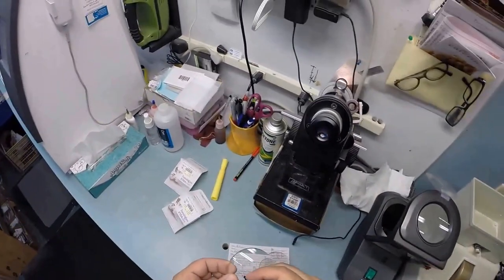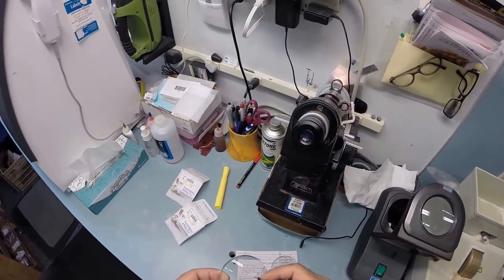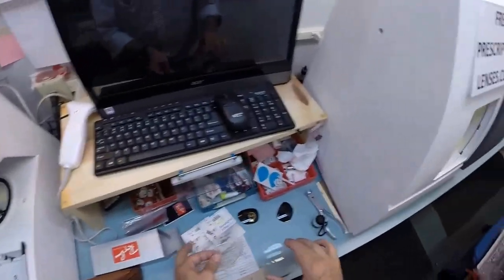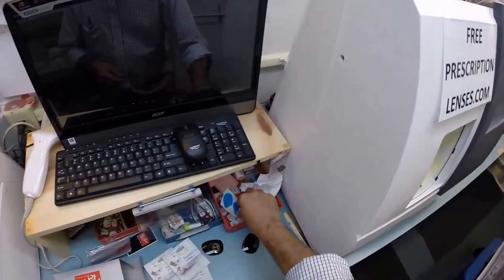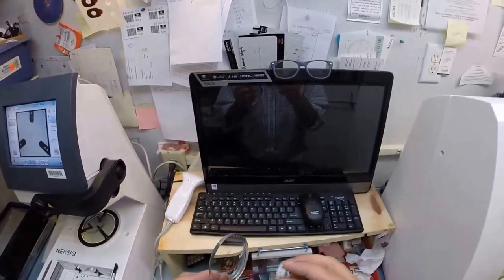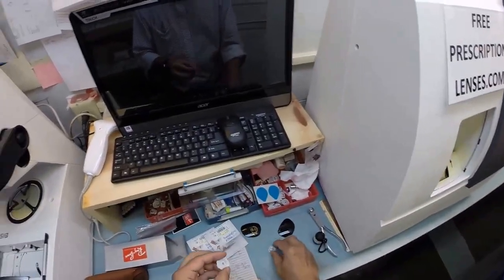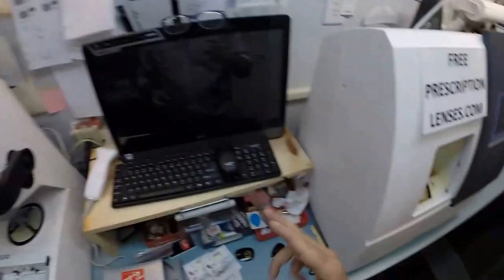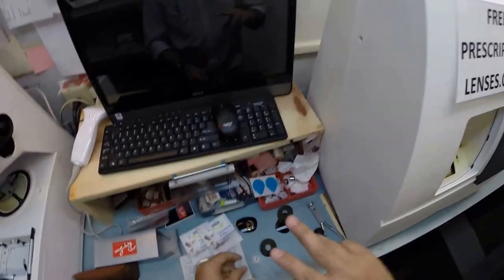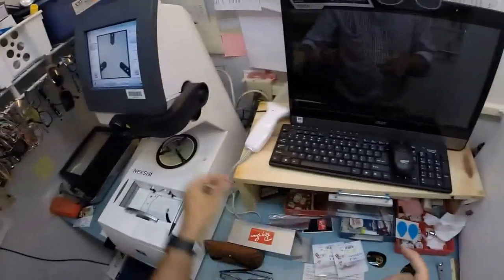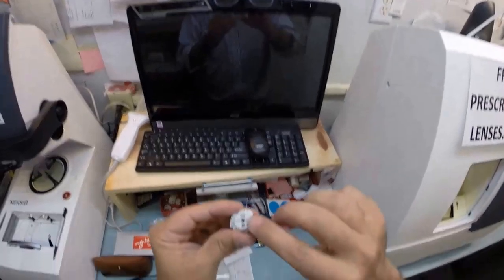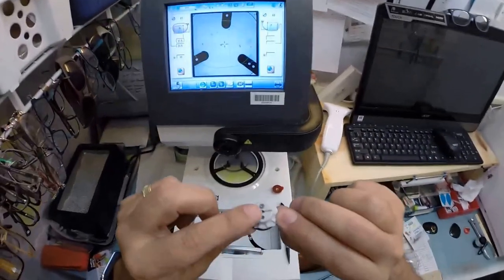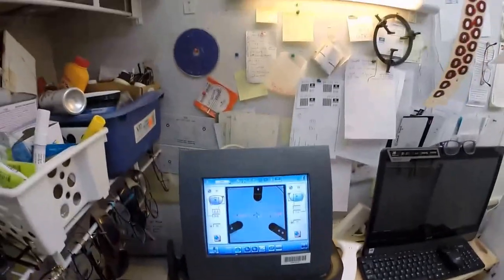Now let's put three dots on your lenses - uno, dos, tres. I didn't know there was gonna be so much math involved. Okay, let's take everything back down here. Your right lens, we're gonna place it on the platform. This is a block - I like to call it Jenny from the block. I need to attach this to your lens while it is cutting. This is what's gonna hold it inside the machine. So I need two double-sided adhesive stickers, of which I've got maybe two left. The black side is the sticky side - that's how it sticks to my fingers.